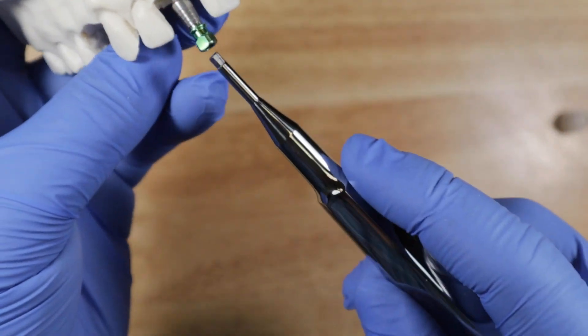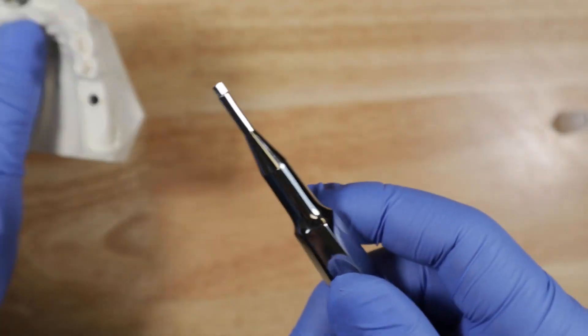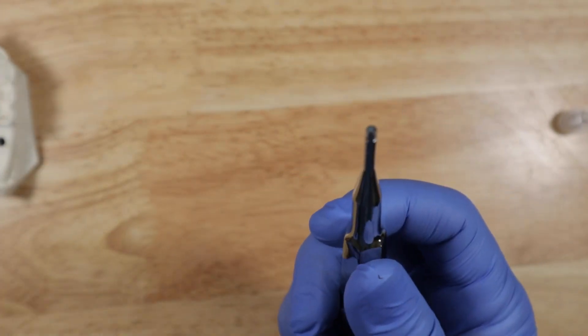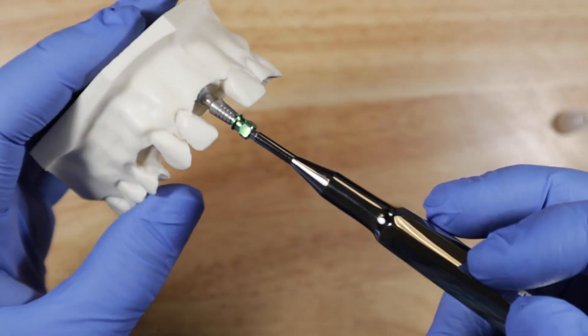Only thing to watch out for is that this little guy kind of slips in and out of here. So don't go and hold the implant by itself just on this. Make sure you properly secure your implant here first and then you use this to take it the rest of the way.